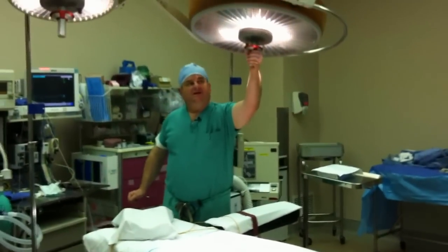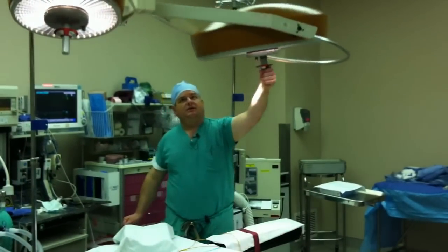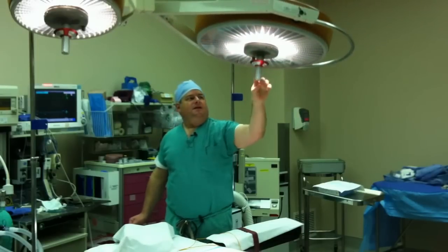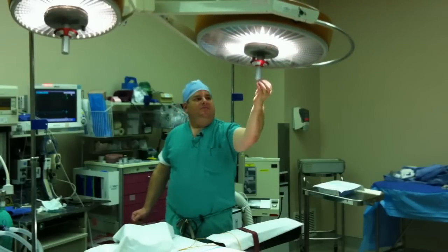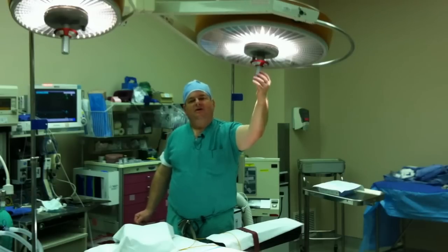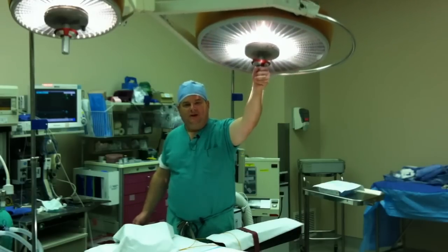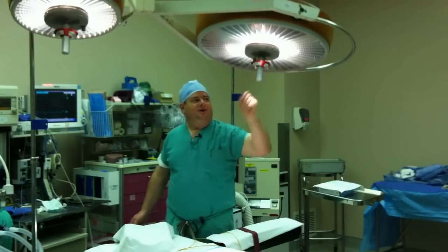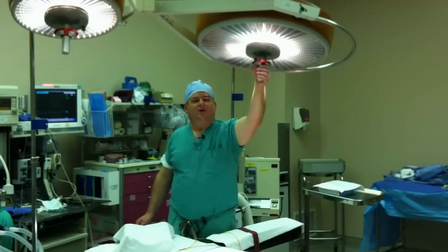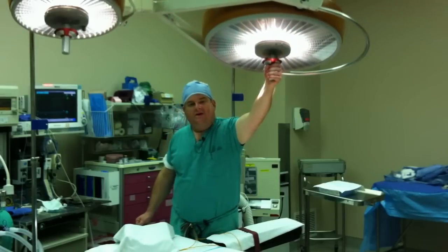These are the operating room lights. These are high-intensity lights and they're aimable so that we can move them around in all kinds of different directions to get the light right where we need it. These handles here — we have the capability of putting a little device on there that's a sterile cover so that while we're operating, we can reach up with our sterile hands and move the lights without contaminating ourselves. We jokingly call those the 'light condoms' because they fit over the handle to keep them sterile. That's how we move the lights and get them right where we need them.